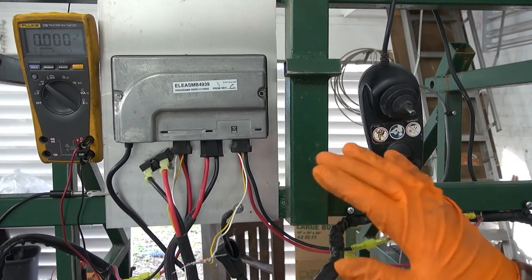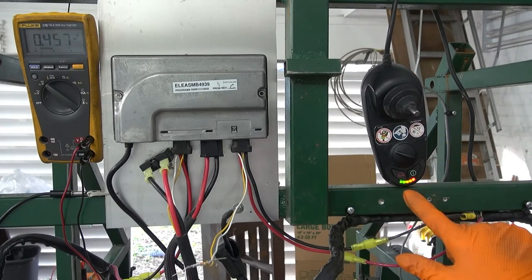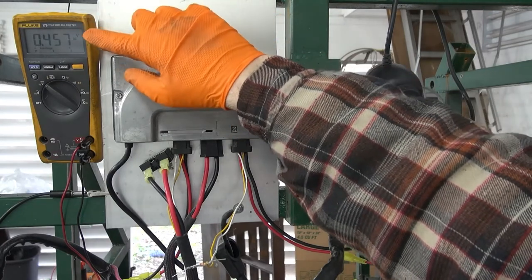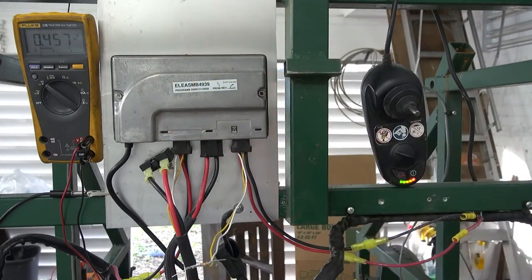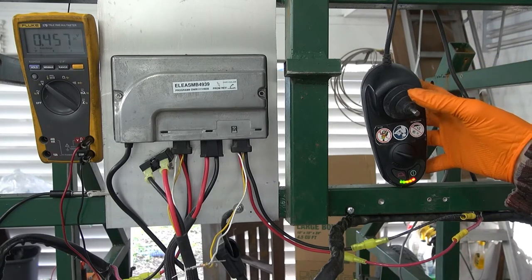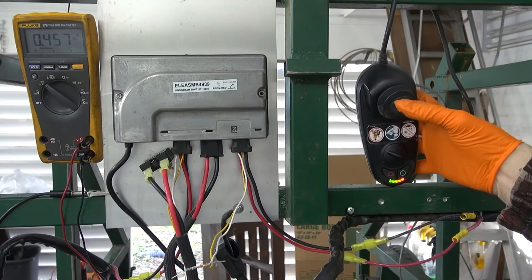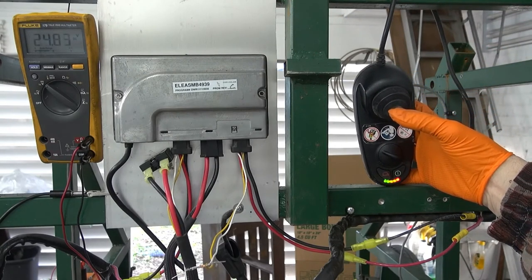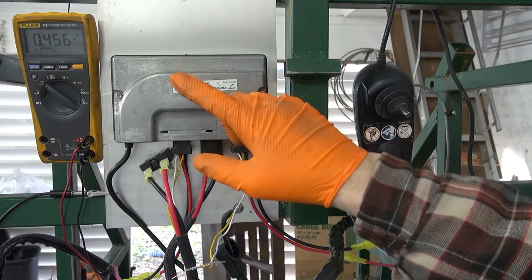I can power it up now and I get the full charge. You'll notice the voltmeter connected across one of the electric brake channels reads about 0.457 volts — that's about a semiconductor diode drop across the resistor. As I apply a command, you'll see the voltage go up to 24 volts as the brake is released and the motors begin to spin.